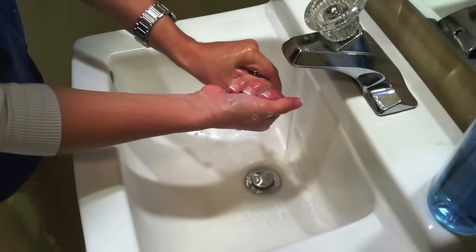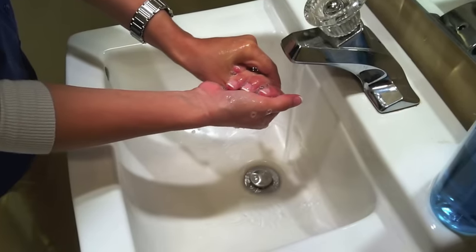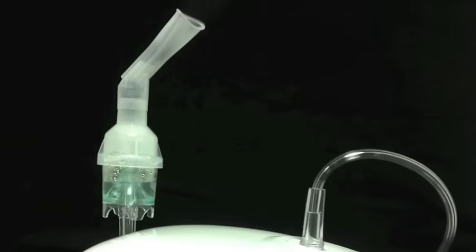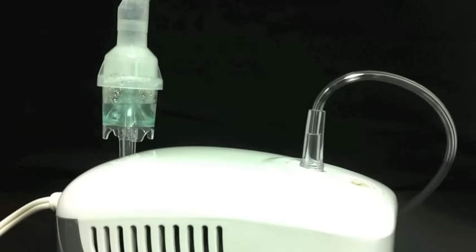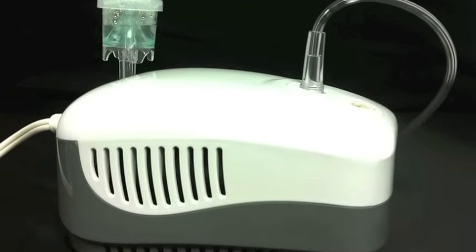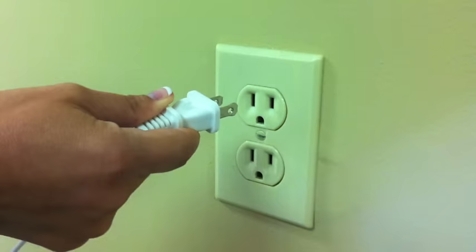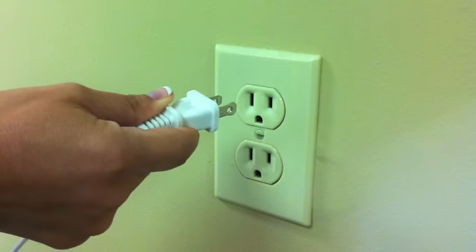Always wash your hands before setting up your nebulizer. Place your nebulizer on a hard surface such as a table or countertop. Plug your nebulizer into an electrical outlet.